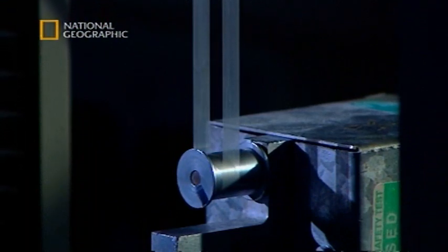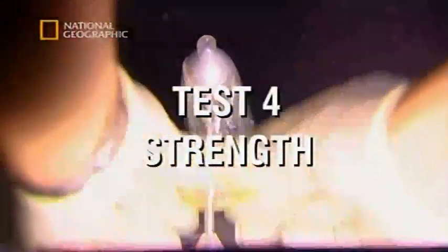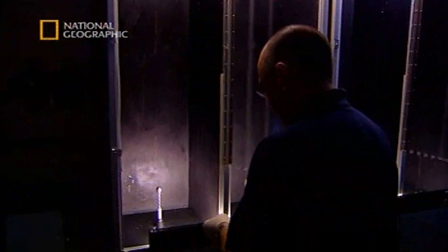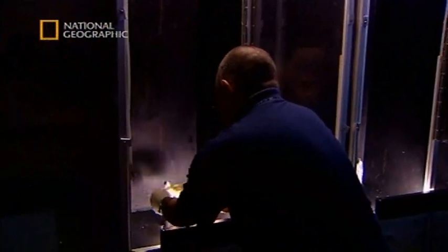Just one more test to go. This test is for the strength of the condom—it's a burst and volume pressure test.